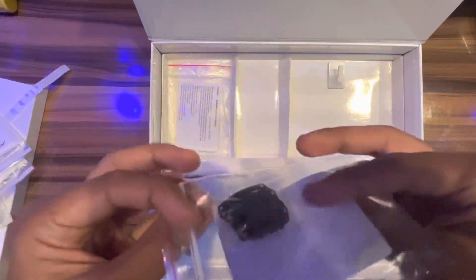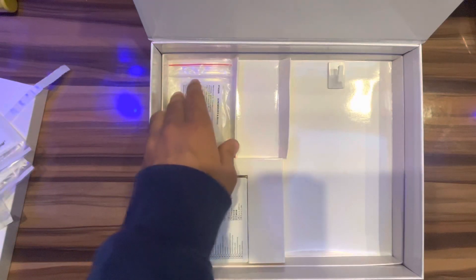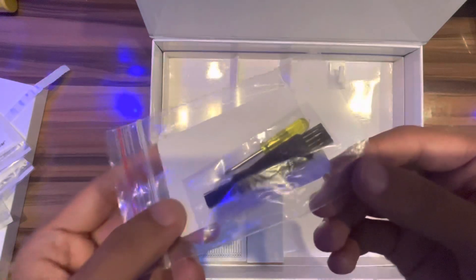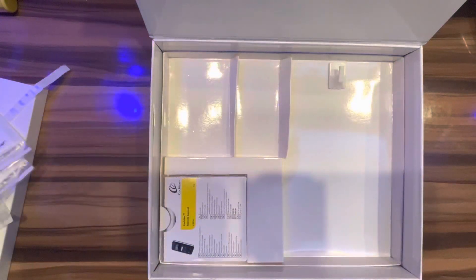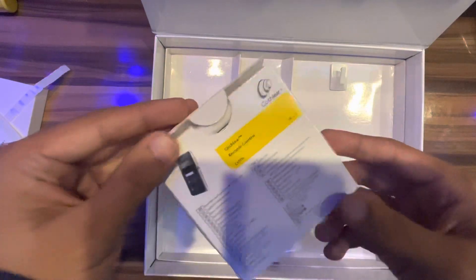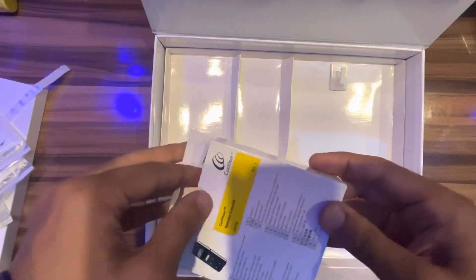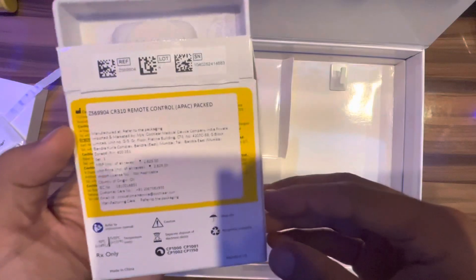There are five hair clips — only one use. This is the remote control to adjust volume up and down, and to change the program number.